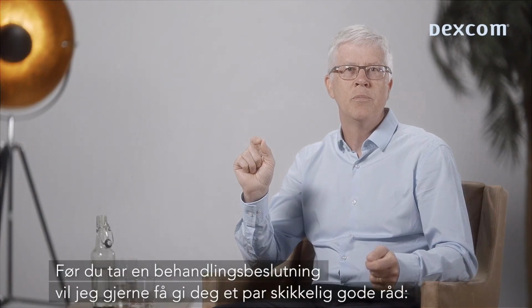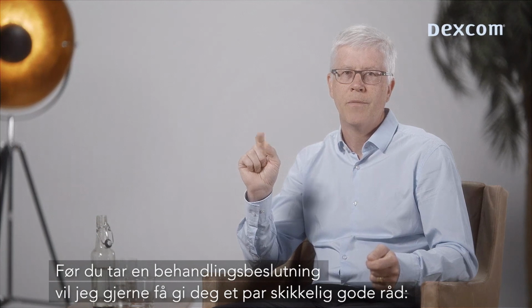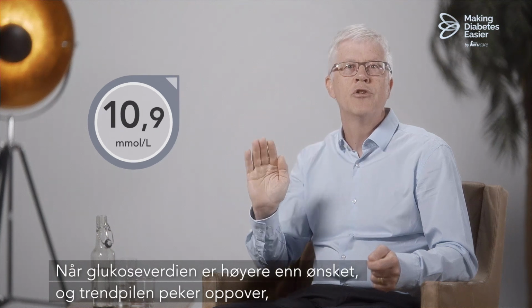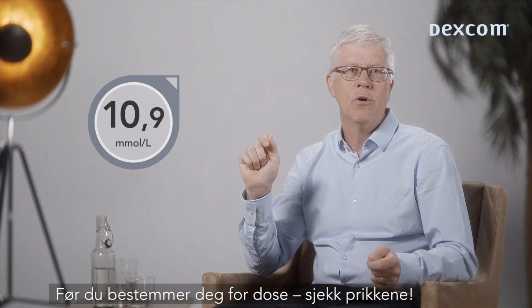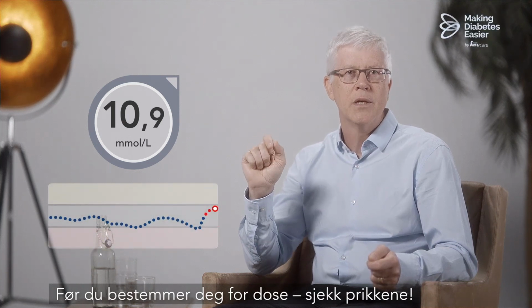Before you take a treatment decision, I would like to give you some really good advice. First, when the glucose value is higher than wanted and the trend arrow is pointing up, you might consider taking a corrective dose. Before deciding on your dose, check the dots.